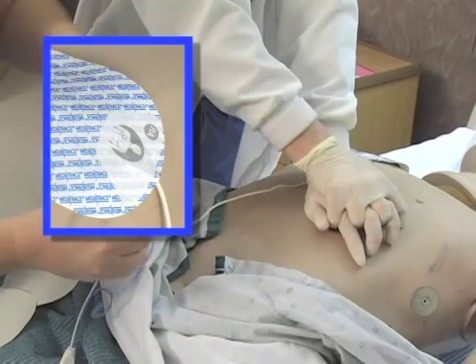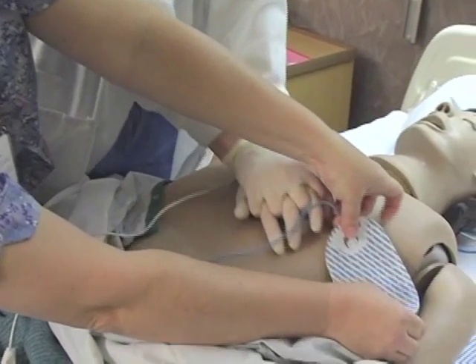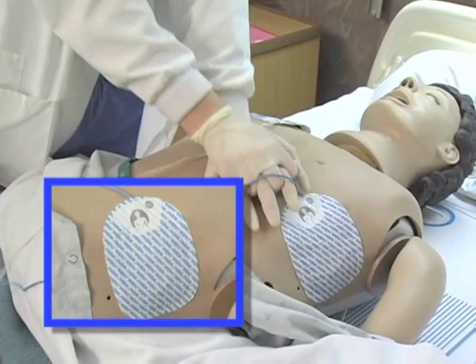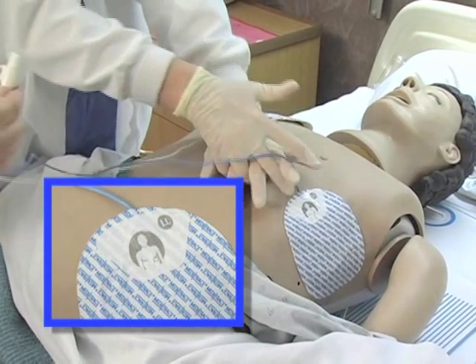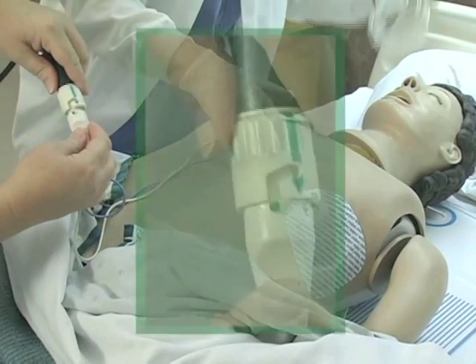If you have a patient who is pregnant and is on a fetal heart monitor, be sure to turn the fetal heart monitor off before turning the AED on. If you have a patient who has an internal pacemaker on the right-hand side of their chest, make sure you do not apply the AED pads over that pacemaker. Connection between the pads and the cable on the AED goes green to green.